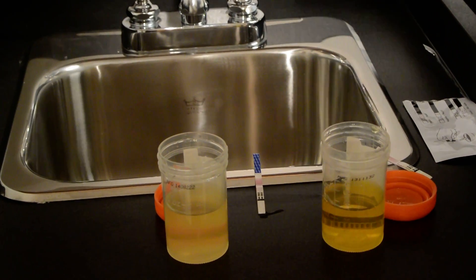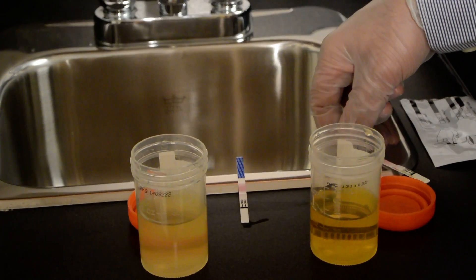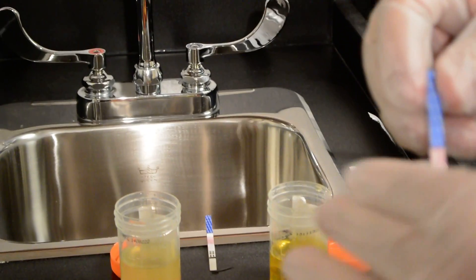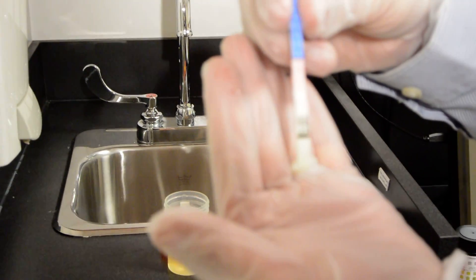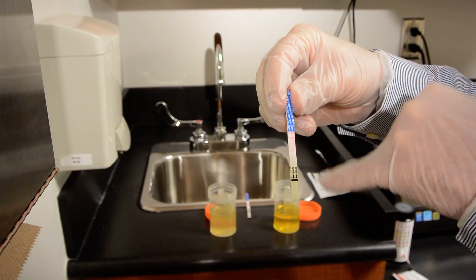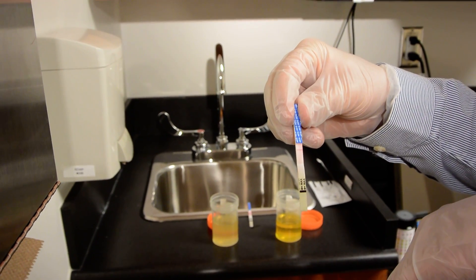I'm sure you always wear gloves. As you can see this one is not quite quite ready but you can already see that there is a single line here. A single line means that this urine sample is negative.